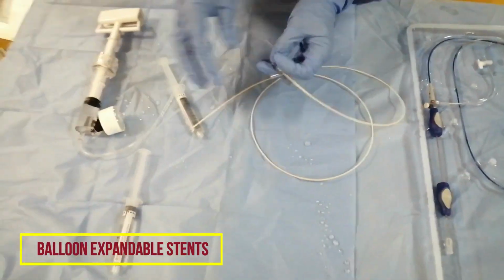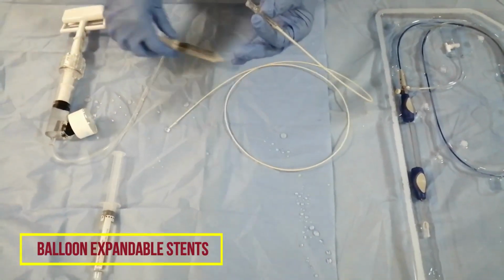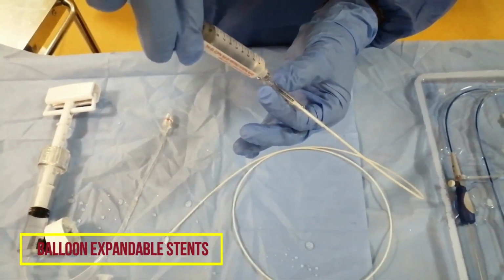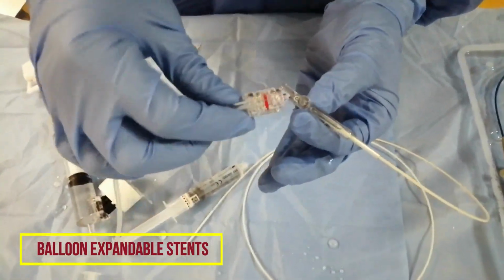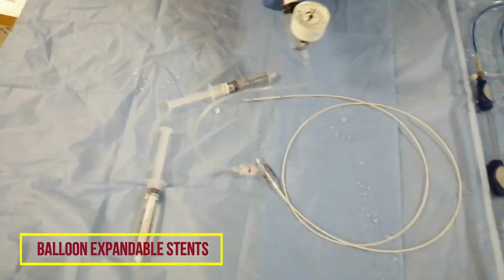This is also primed. Next is the side port. For the side port we use a small needle or something and prime it with contrast, usually the diluted contrast, so that no air goes into the balloon. After that we connect the inflation device onto the side port. Okay, now this is ready.